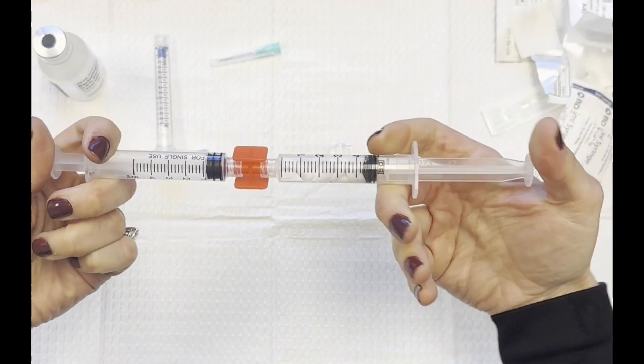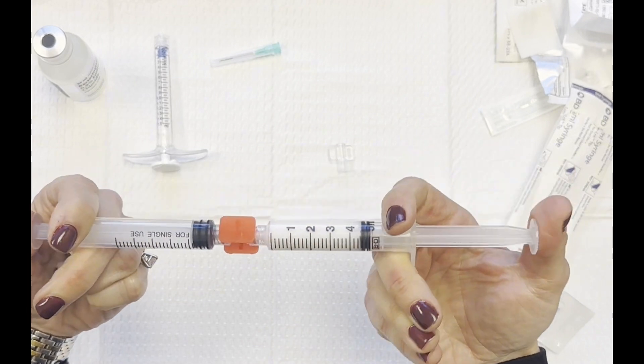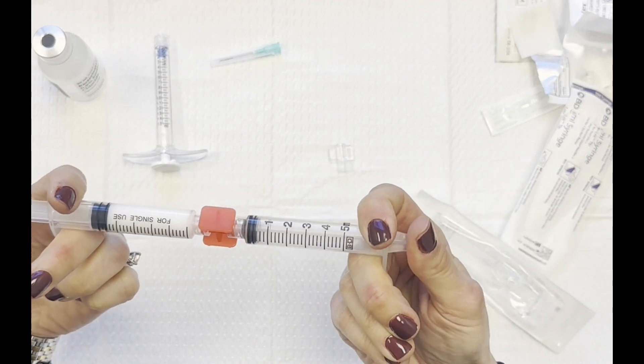And then, this is so satisfying, but then you are going to blend, blend, blend, until it really blends nicely. You'll feel the difference from beginning to end.